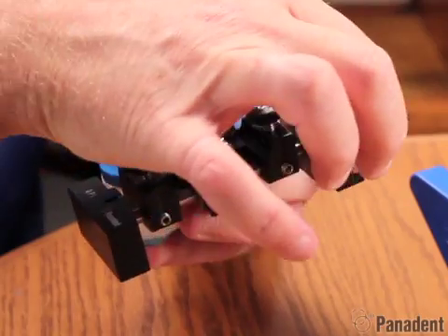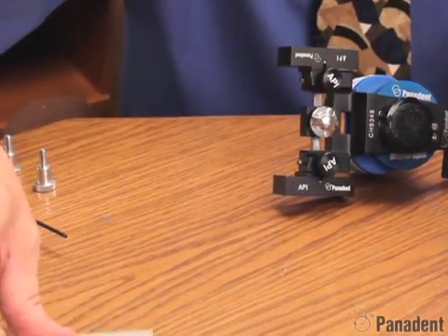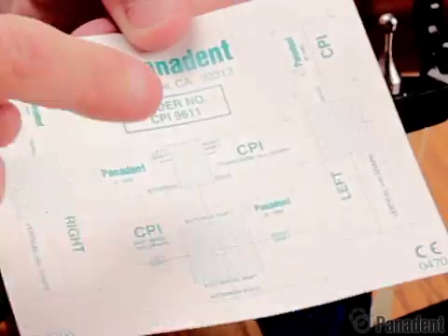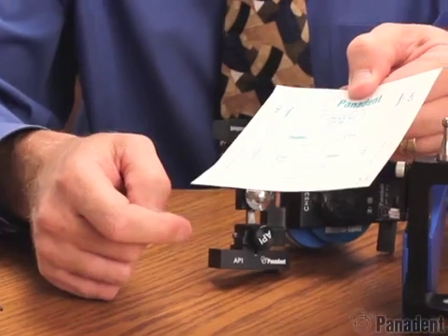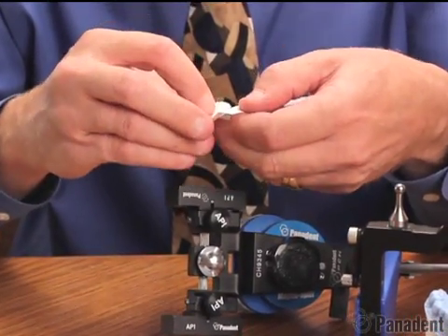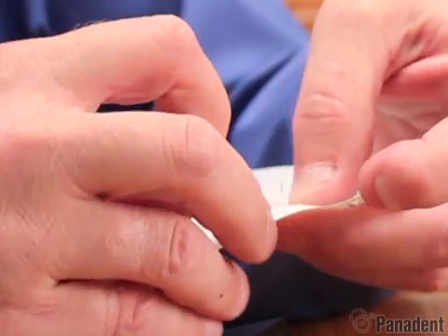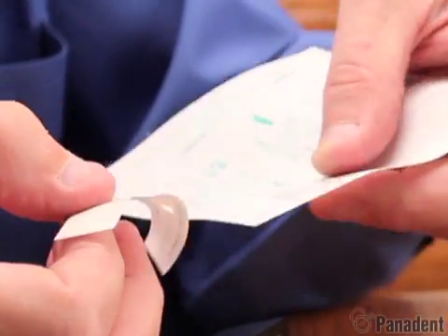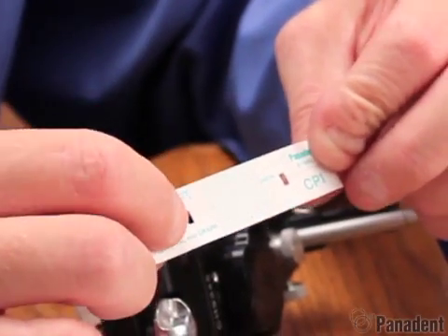Now we can actually pull these out a little bit. The graph paper — we'll peel off a sheet. It does have a left, a right, and a horizontal graph paper, and that will correspond with the patient's sides. So we're going to start with the patient's left side. There are little windows in the graph paper, so as you peel these back, peel them back so that the little window opens up, or you can take a little tool to remove the little dot so you can see the window openings.